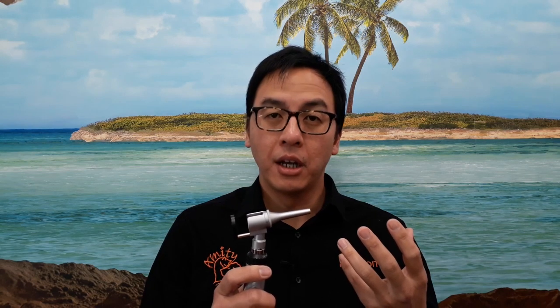Personally, I don't use this. The reason is because this is a metal tube. One reason is that if the ear is sore and inflamed already, the last thing I'm going to do is make it worse by putting a metal tube into the ear canal, which could be a little bit painful. Secondly, if the dog resents it because it's very sore, it will shake his head — and if it shakes its head with a metal tube inside the ear, I could potentially cause a bit more damage.